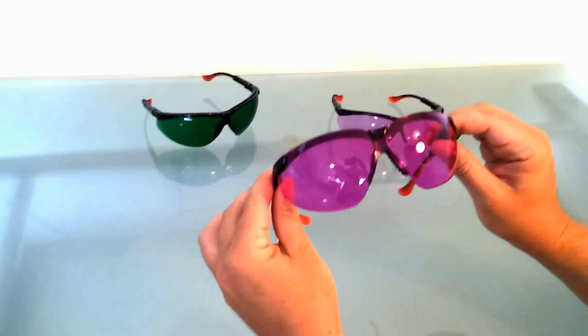And because these are made specifically for human eyes, unfortunately there's no way of demonstrating how they look, but I can tell you that these are absolutely amazing and a must for anyone drawing blood. These glasses are available through Phlebotomy staffing for just under $300 a pair.